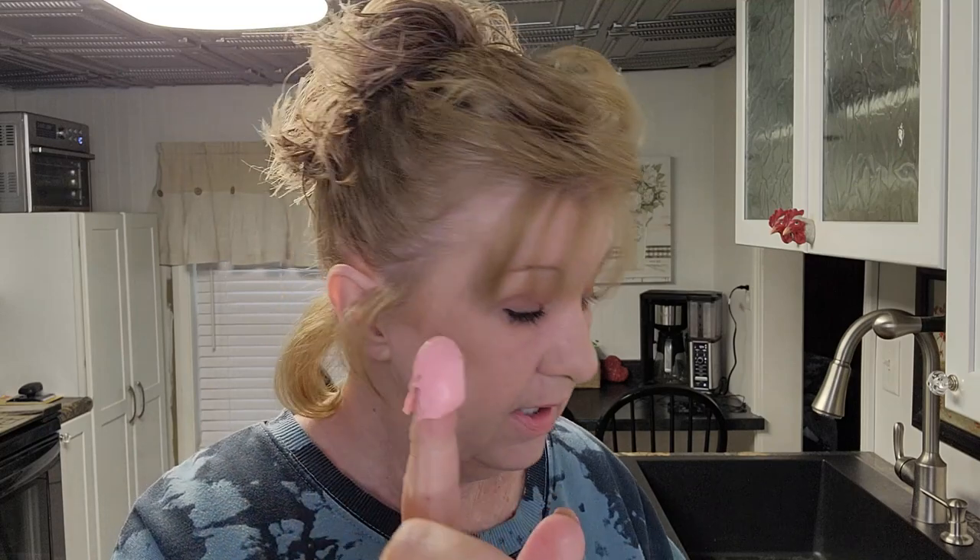Here's the pink putty and the white putty — you mix them together, then you put it in your denture and it forms around your denture. It doesn't take long and it's really soft.